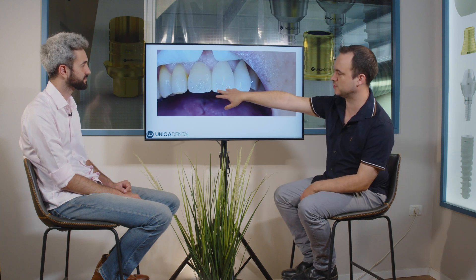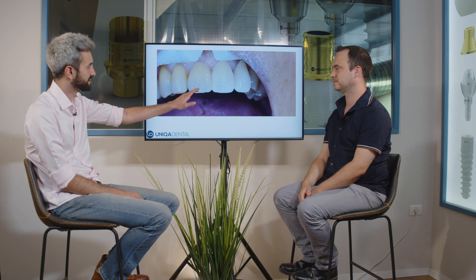You polish it also, right? When you add the color, it looks polished after the oven. So we adjust a little bit more and more, and this is the final color. You can see the difference between the two teeth — those ones are too white. We want to make it a little bit yellow-gray.